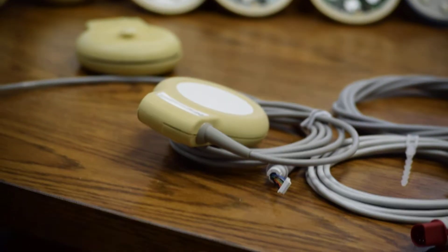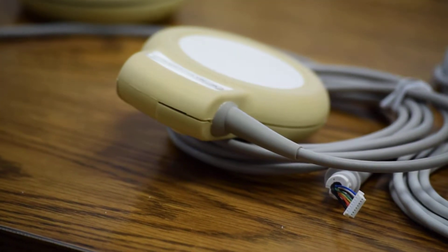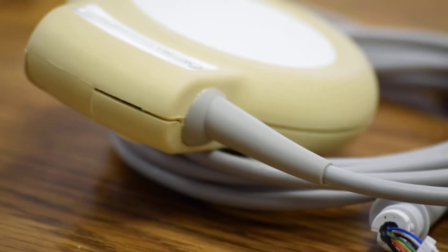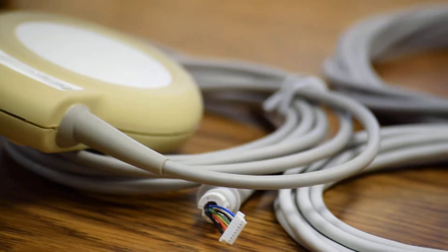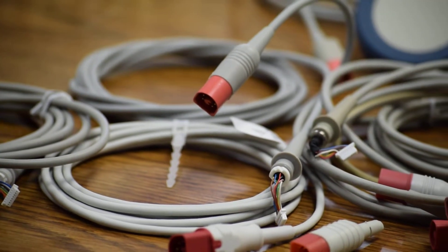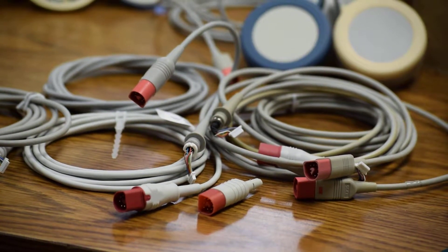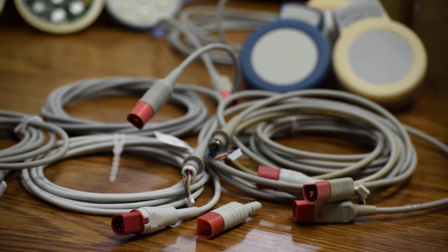It's better to use original Philips parts, which last at least three years under normal usage. Aftermarket cables fade, their color changes, they become yellow, and tend to fail within a short span of time. You're lucky if they last a year, whereas they're expected to last at least three years — in comparison with the original Philips part.